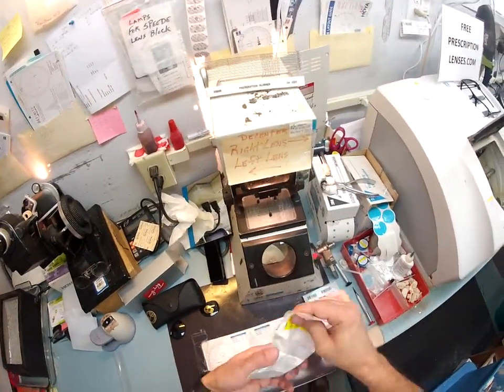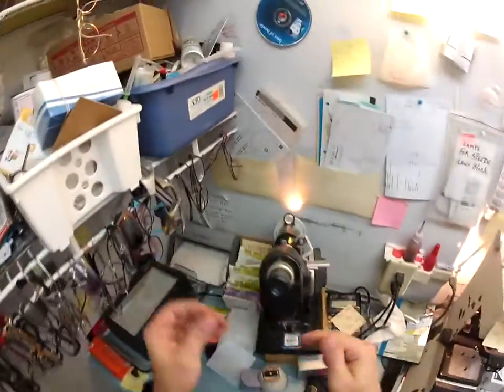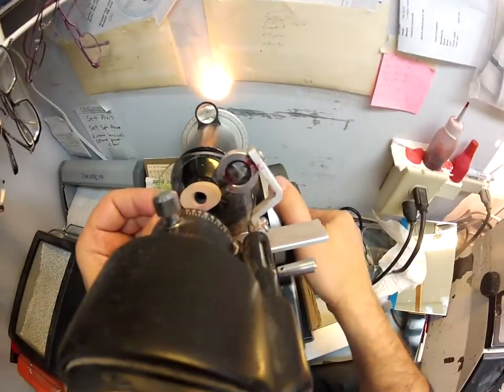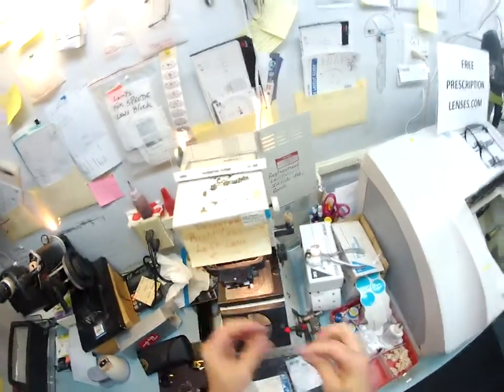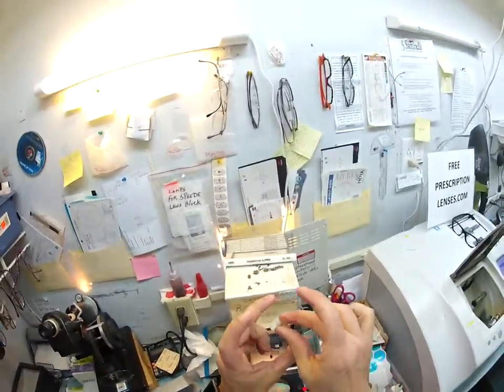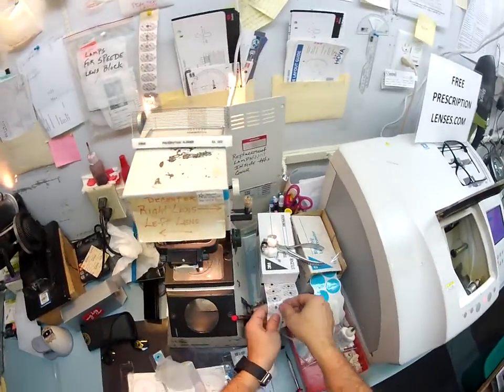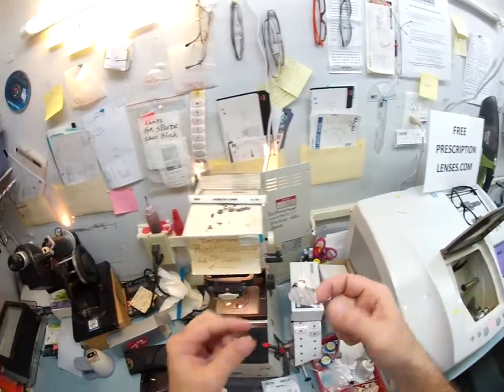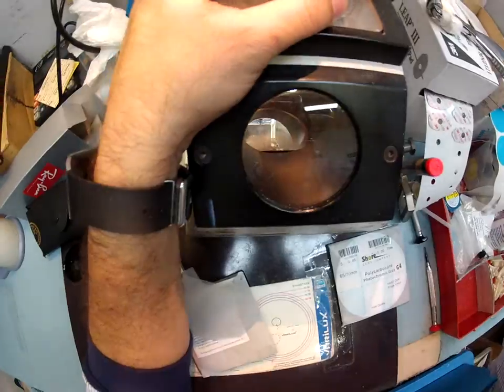These are your lenses. This is the pack that comes to me. I take them out of the little foam pack they send it to me in. I am going to put it in my blocker. If this were a prescription, I'd put it in my Marko 101 lensometer and dial it up — I'm getting plano, no prescription. So this is a block that's going to hold it in place while it's cutting. I need to put a little 3M sticky pad on there. The black side is the sticky side.